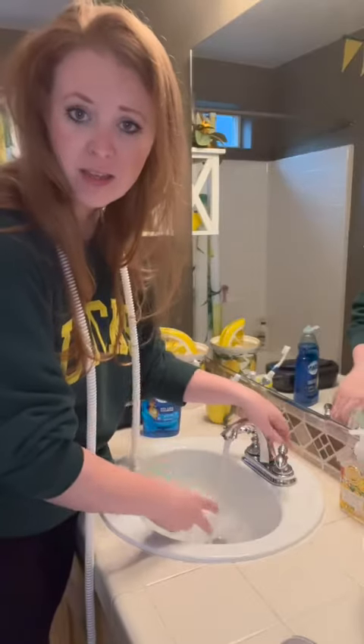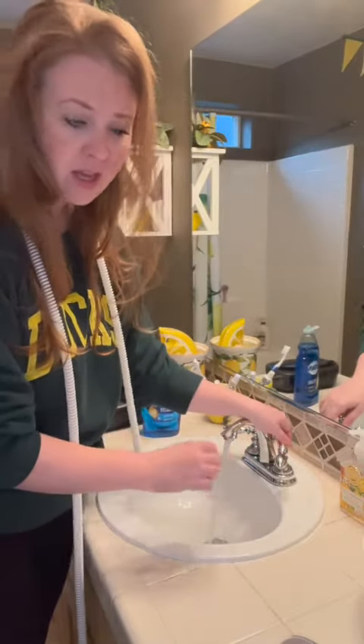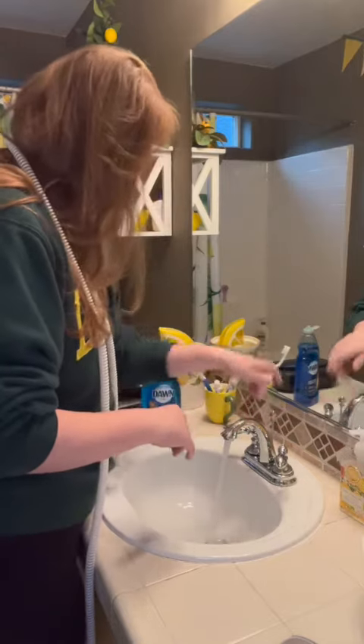You realize it's a combination of, like, two songs, right? Yeah, and? Do you have a problem with that? Just wanted to make sure. I mean, don't mind me, I'm just cleaning. Are you washing your hose for your CPAP machine? Yeah, I'm cleaning my CPAP hose.